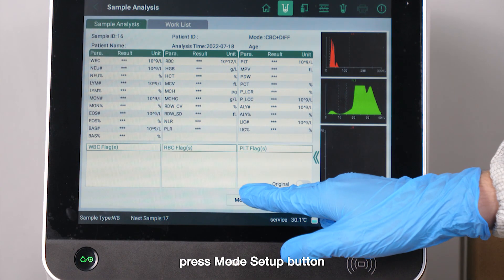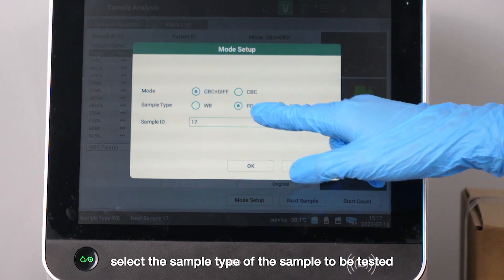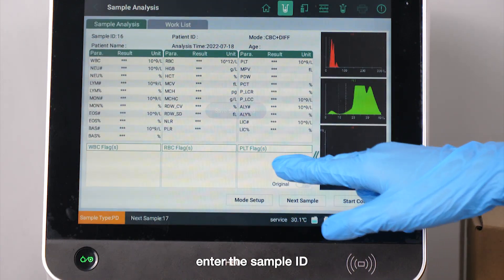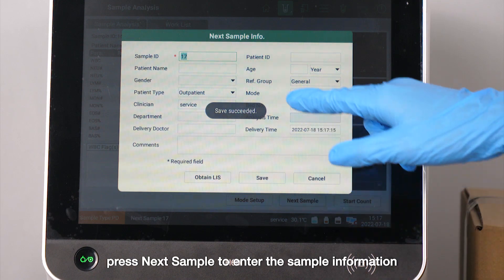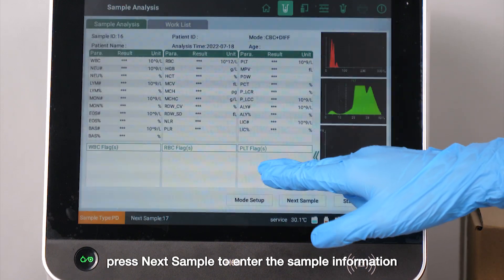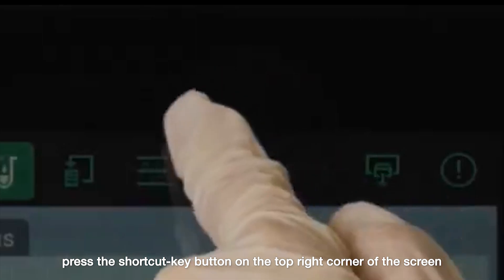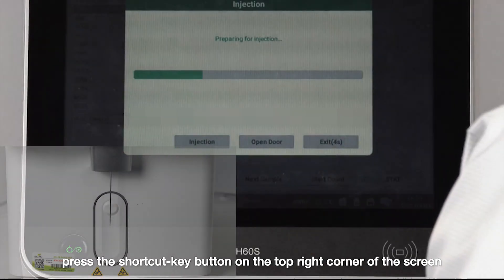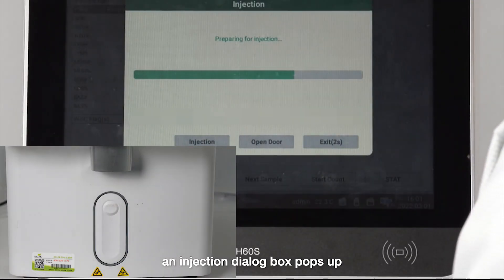Press the mode setup button. Select the sample type of the sample to be tested. Enter the sample ID. Press next sample to enter the sample's information. Press the shortcut key button on the top right corner of the screen. An injection dialog box pops up.